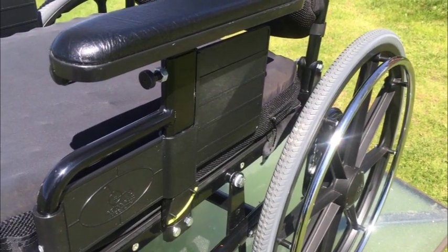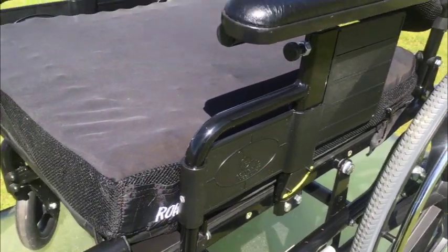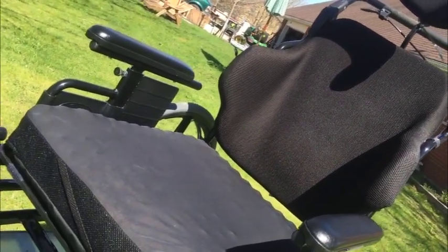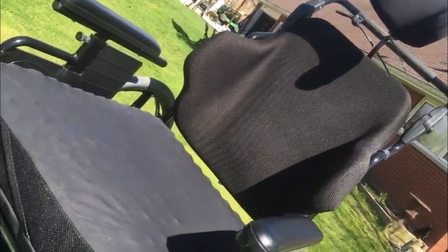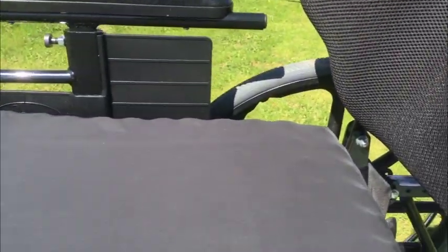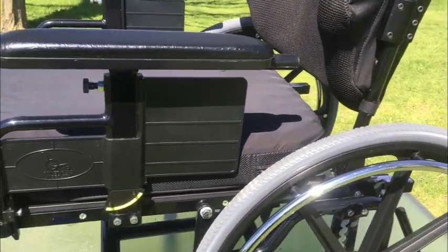It's also the finest chair from the standpoint of cleanliness, overall cosmetic condition, and structure. Pricing is firm — I simply don't play pricing games. You're going to find this chair is very much in the same pricing range as others, but the difference is everything I've already listed. When you reach out, I'll get back to you almost immediately. Delivery is also an option if you need the chair brought to you.